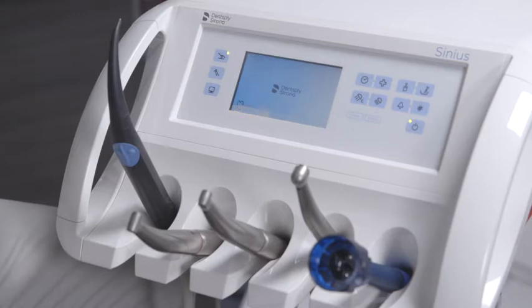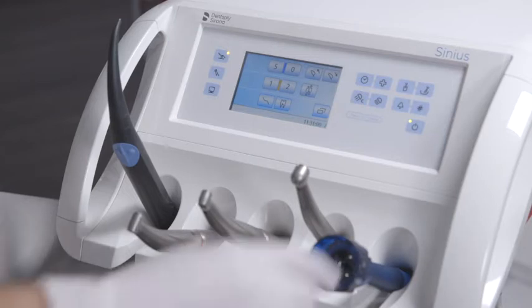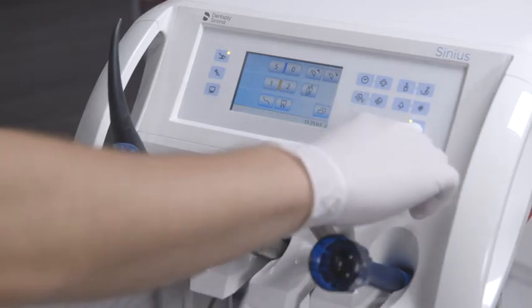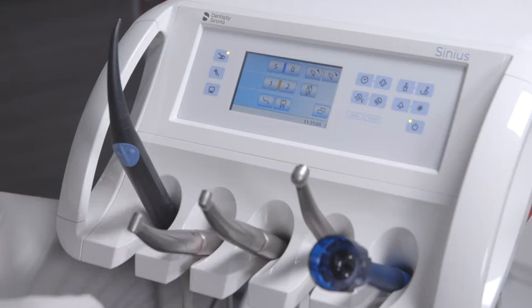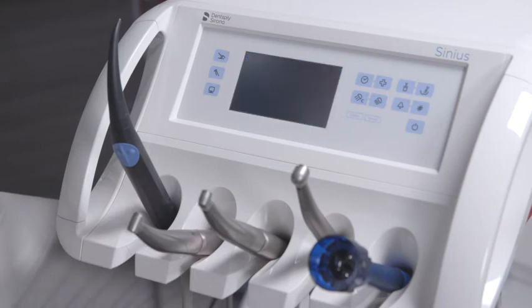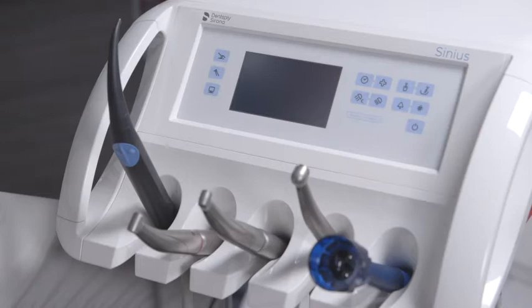the operating system boots up. To switch it off, press and hold the main switch on the dentist element until an acoustic signal sounds. Then release the button. The treatment center shuts down and switches itself to standby mode.